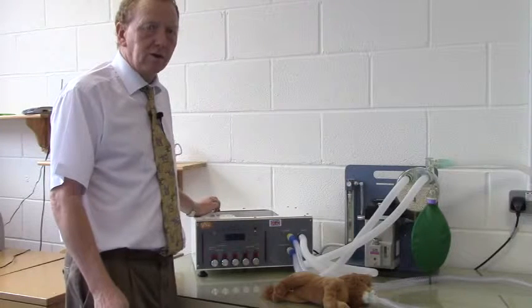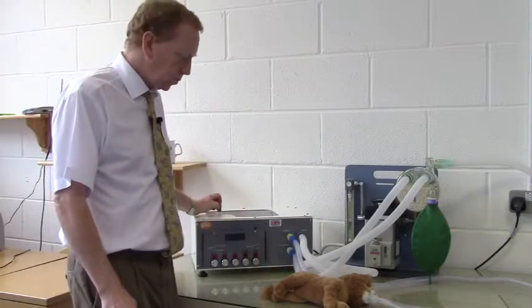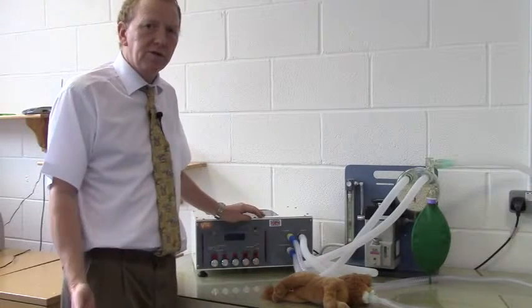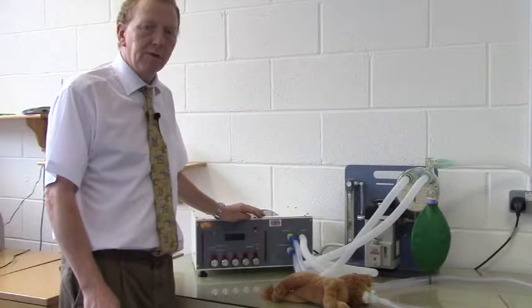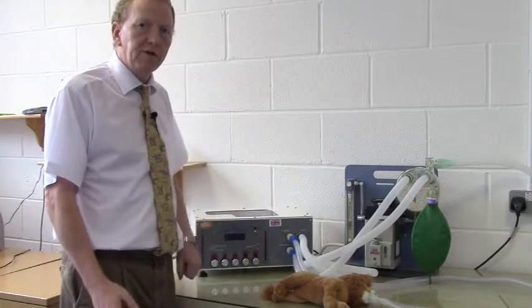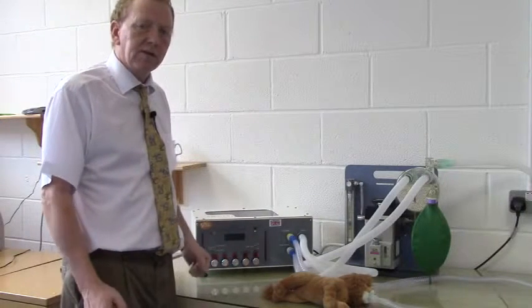This video describes the use of Merlin in volume cycling mode. Using Merlin in volume cycling mode is probably the most intuitive and simplest way of using Merlin. In essence, you determine the tidal volume to be delivered and the time in which it's delivered, set those parameters and set the ventilator to run.